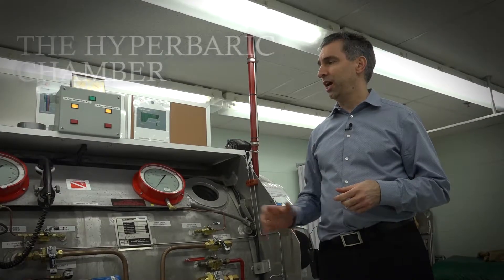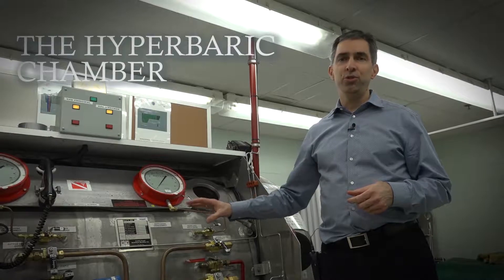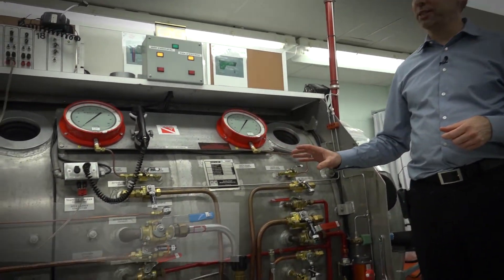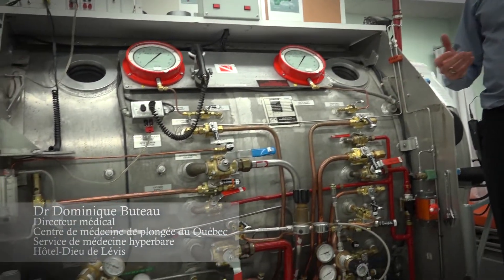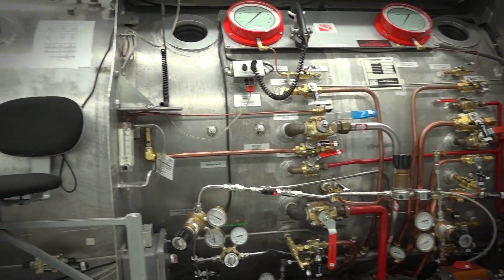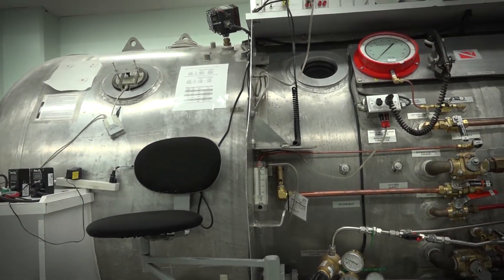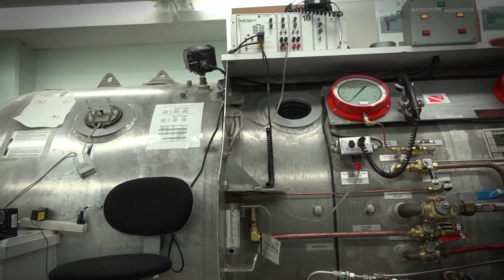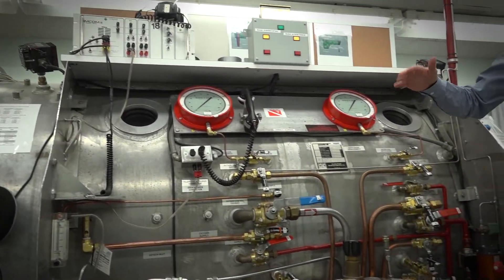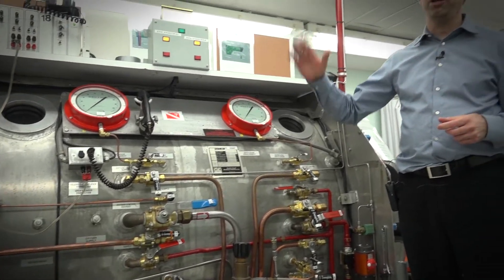We're now in front of a hyperbaric chamber. This will be used to treat a diver who is suffering from decompression sickness. Decompression sickness is a condition where nitrogen bubbles are inside the body of the diver. We need to get the diver back to pressure — we'll usually go to the equivalent of 18 meters of depth.